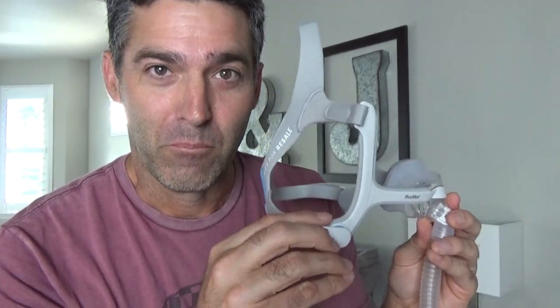We have the famed magnet technology. If we take off both magnets and just let the mask hang, it makes it really easy to put on — I can do it with my eyes closed. Now I already have this sized for me, but if you want to tighten the top part of the mask you can. You want it snug but not overly tight. Once you get this thing fit for you, every single night you don't have to mess around with these adjustments — you just use the magnetic clips to take it off and put it back on. Makes it very easy.